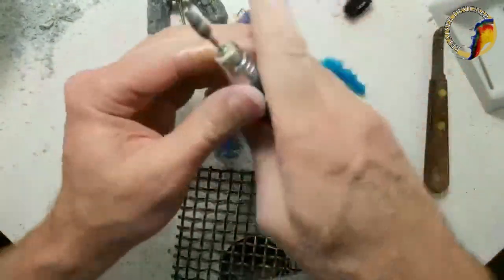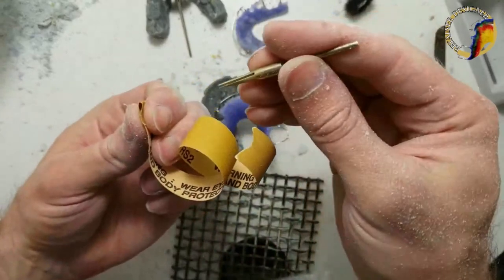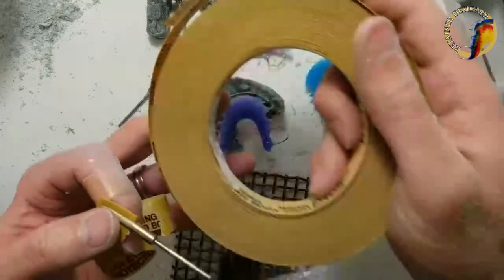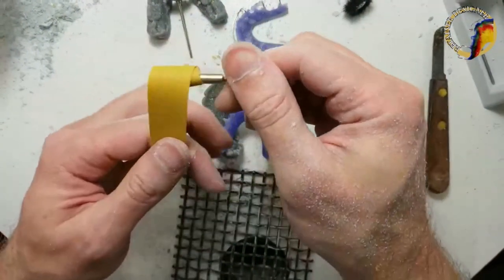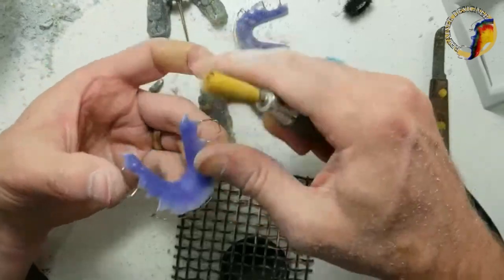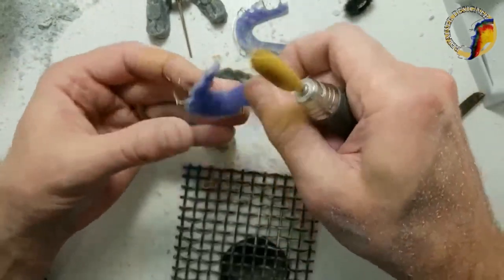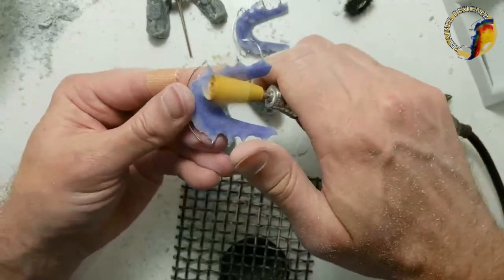There's my sandpaper on a split mandrel and it's falling off — I'll fold it. When the split gets a little worn out you can squeeze it down with pliers so you don't have to fold the paper. We get this from Great Lakes Ortho — it comes in a big roll and you just tear off a chunk and roll it onto the split mandrel. This is like a pre-pumicing step. Like sanding wood or metal, you go with the coarsest grit first, then the coarse burr, fine burr, and this sandpaper is in between the fine burr and pumice.